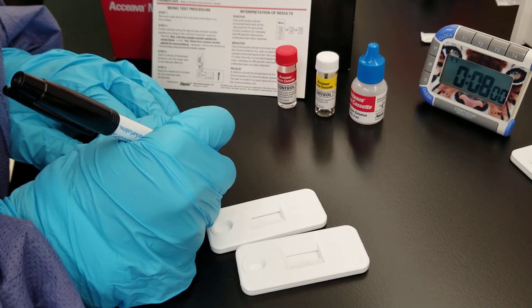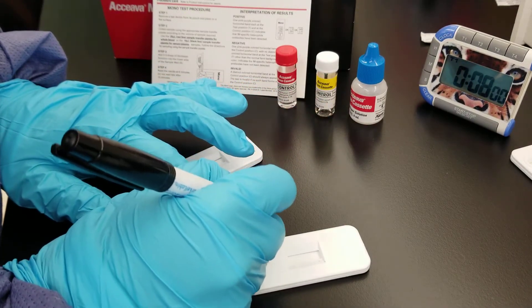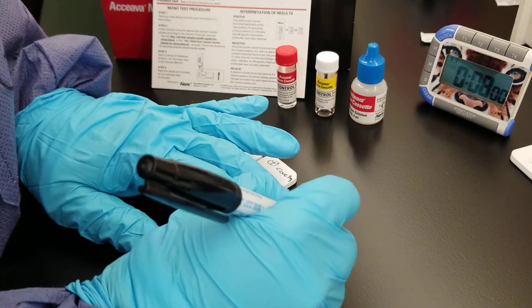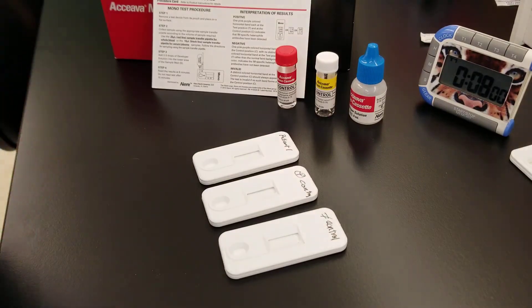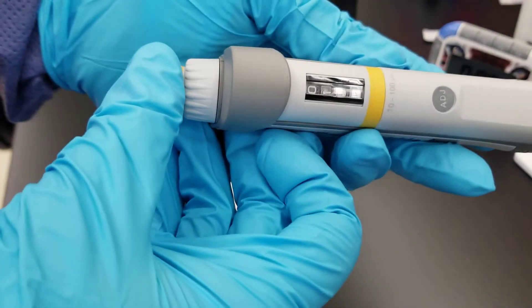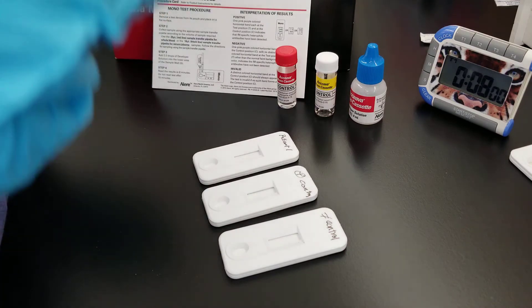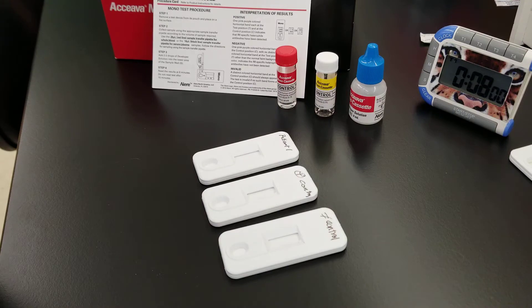So patient 1, positive control, and negative control. We are using 10 microliters of patient specimen and QC.